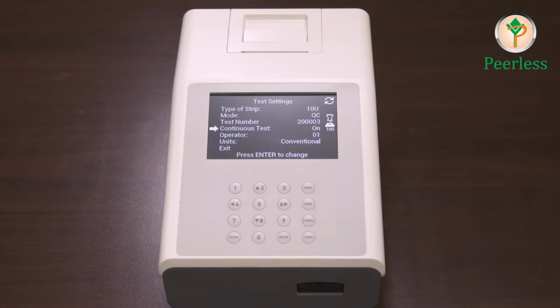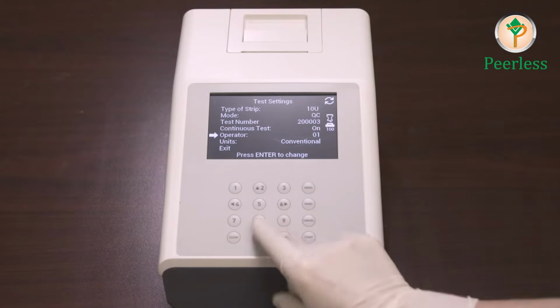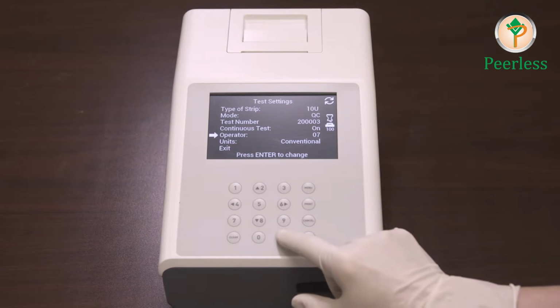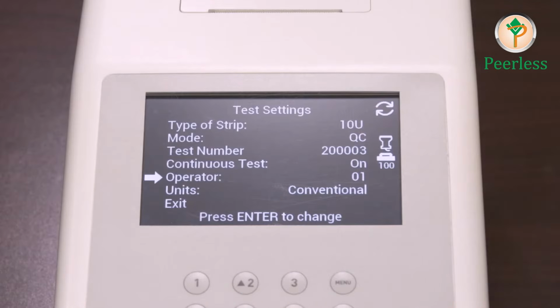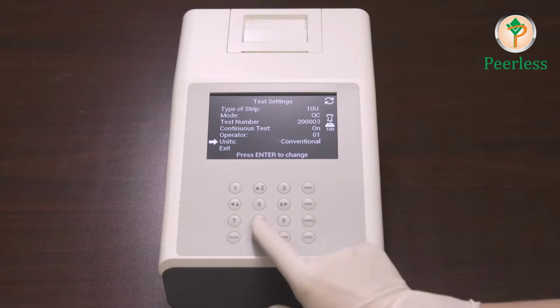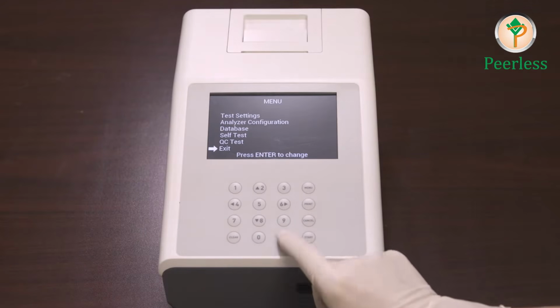Next is Operator. Select Operator ID and press Enter to increase the number by 1. After the number reaches 10, it will revert back to 01. The last option in the test settings is the units. Select the units and press Enter to cycle the units between conventional or SI units. Once you finish all your selections for the test settings, select Exit and press Enter to return to the main menu.